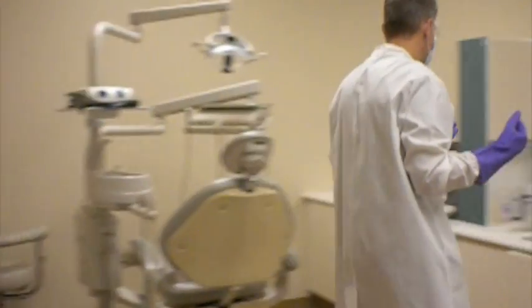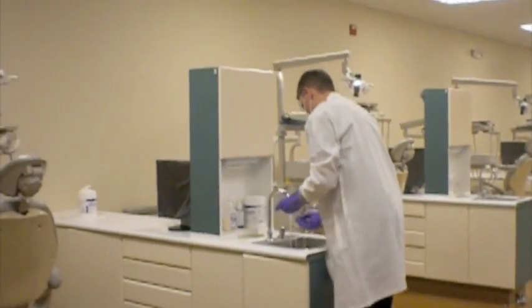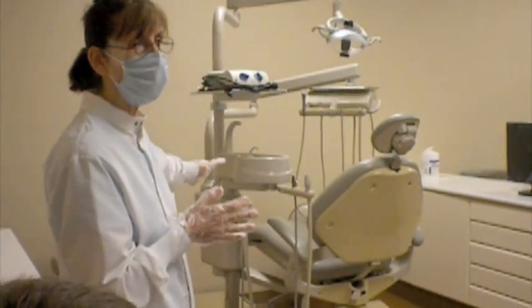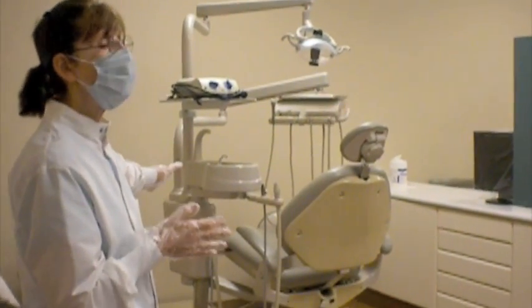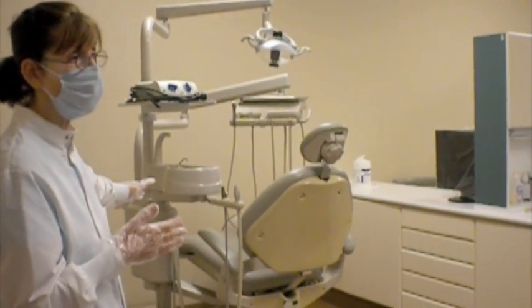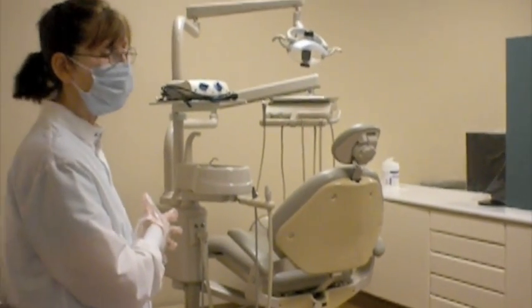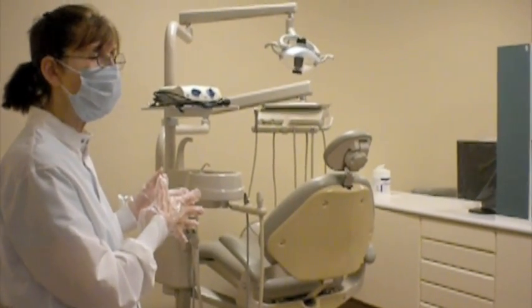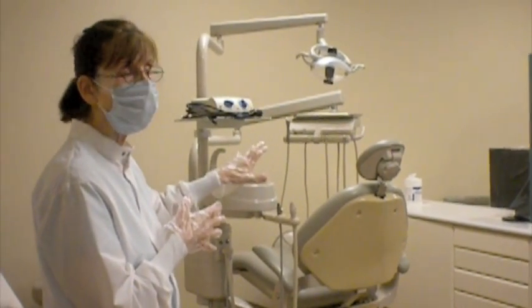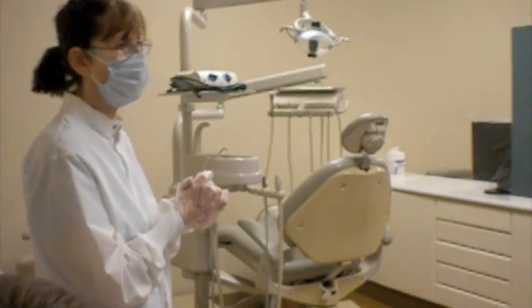So at the end of 2 minutes, he's going to wash his hands again for 2 20-second consecutive wash rinses, because the cuspidor is a highly contaminated area. So we don't want to proceed with the beginning of our unit preparation sequence of sanitization wipes with gloves that have been in a highly contaminated area, because where we're going to begin is the top and the areas that are much more related to the patient treatment and touch than the cuspidor area.